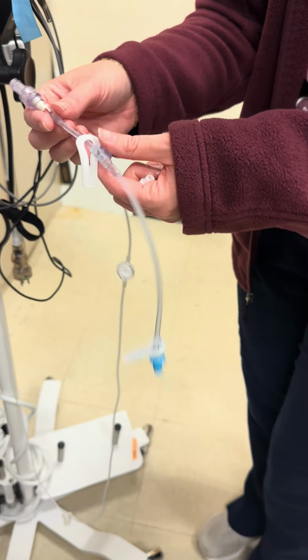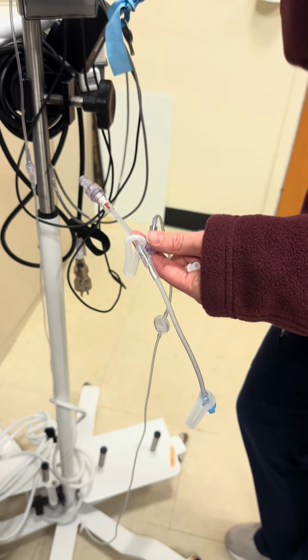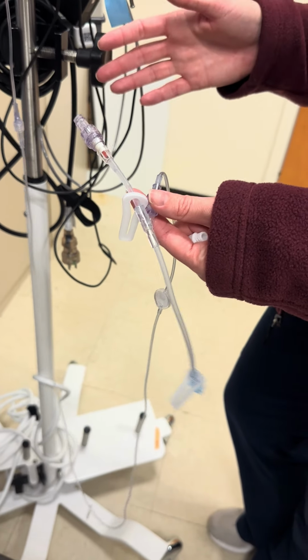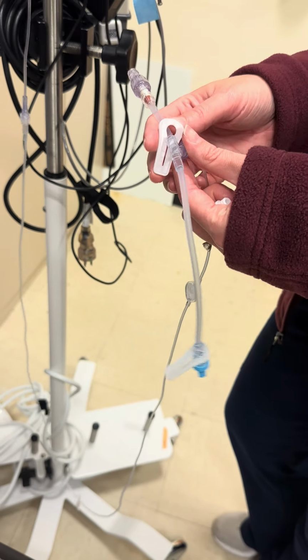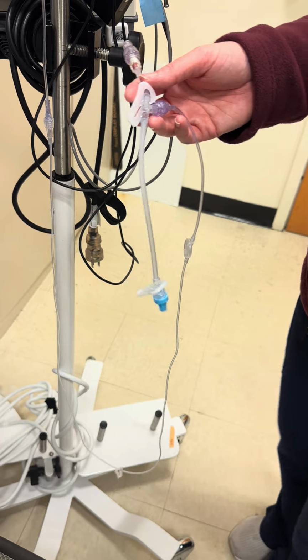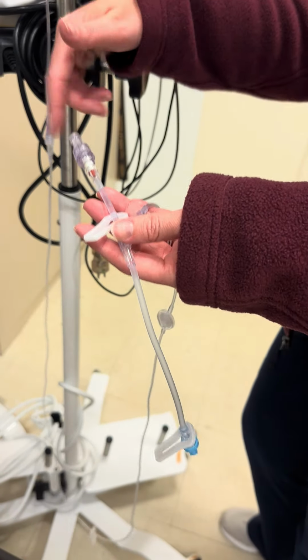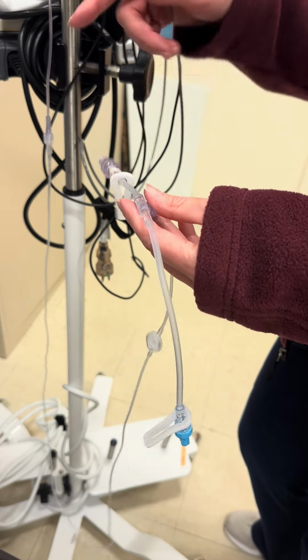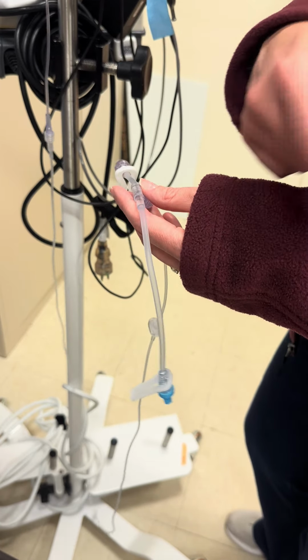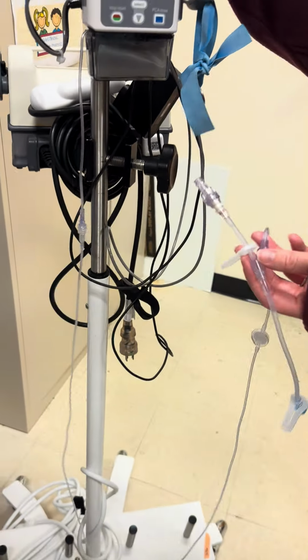Sickle cell patients, especially in a pain crisis, should be on maintenance fluids. If they are not for some odd reason, then you at least need a carrier for your PCA because it's going to be running at such a slow rate. So you would want just like a small bag of 0.9. You can Y it in here and then just run it at like 5 or 10 so that it helps carry your Dilaudid in. Otherwise, just your regular maintenance fluids can hook in over here.